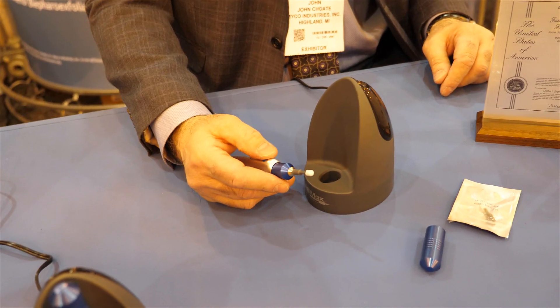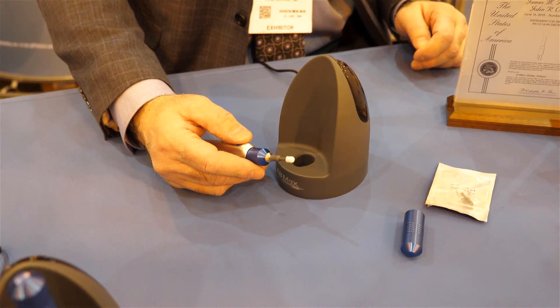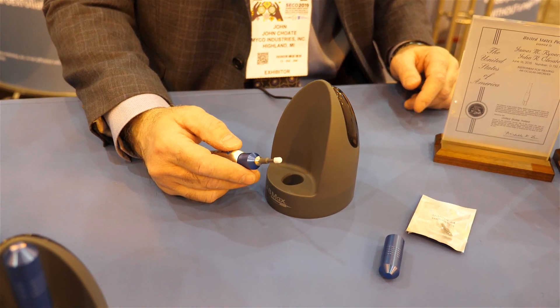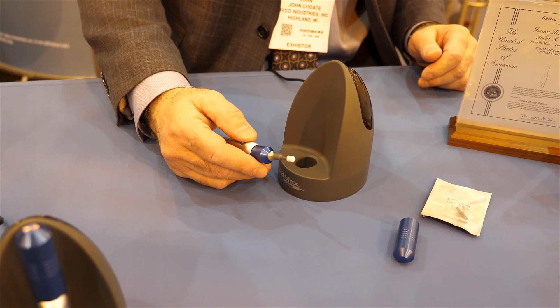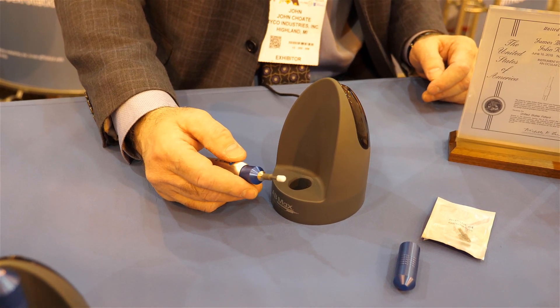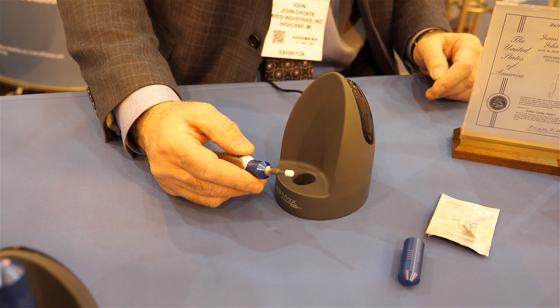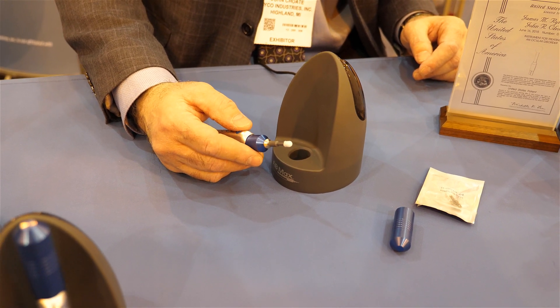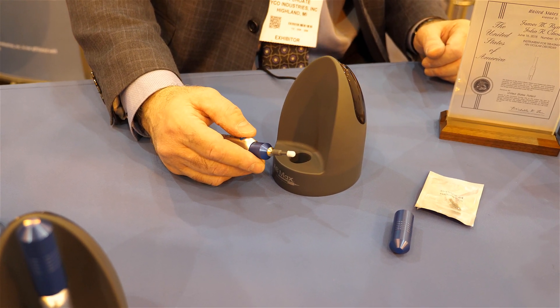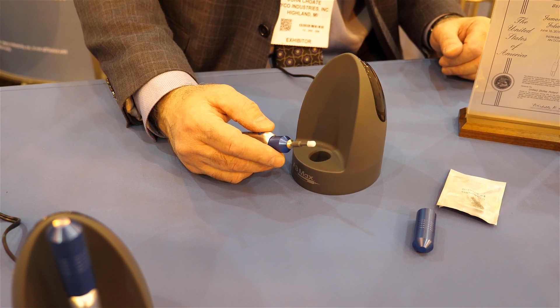For people who've never seen this or a competing product — how does it work? Does the patient have to come back multiple times? From our experience, patients are typically treated every four to six months, because anterior blepharitis is inflammation of the anterior eyelids that needs to be cleaned. The more they're cleaned, the less bacterial buildup you'll get and the better the patient's eyes do.